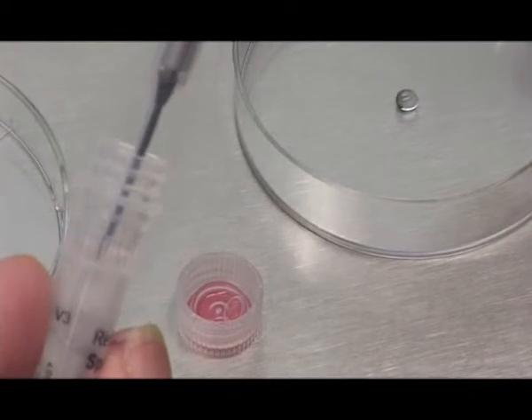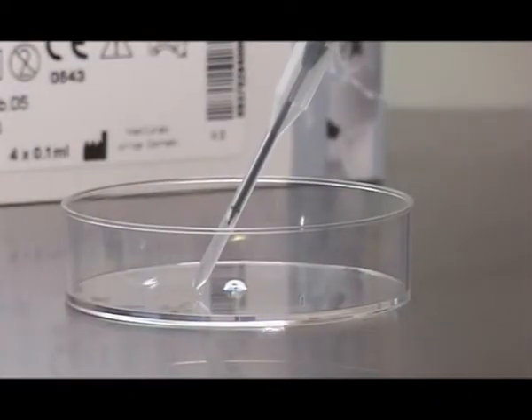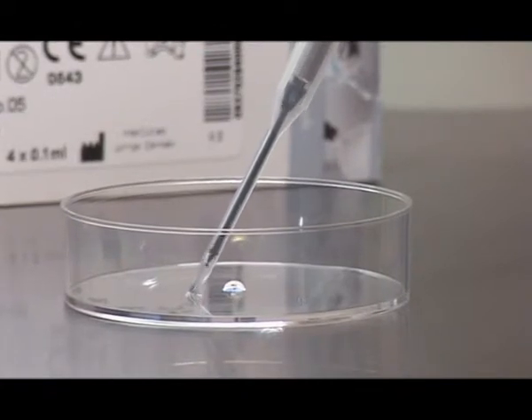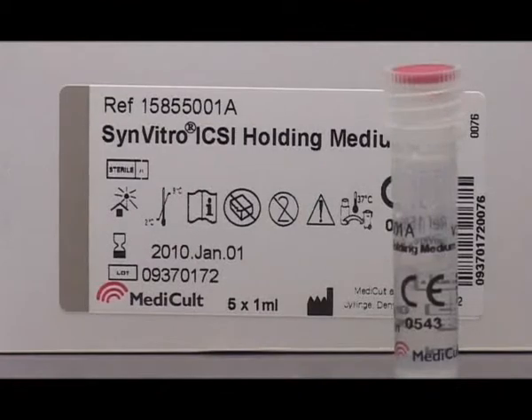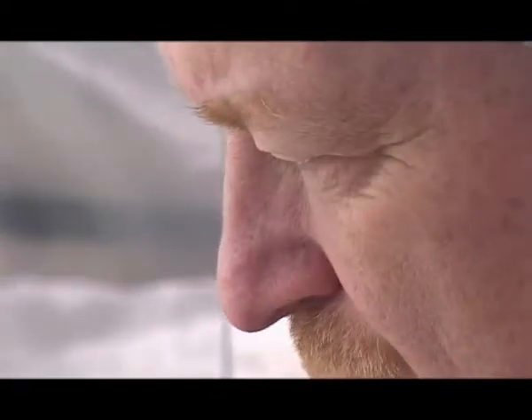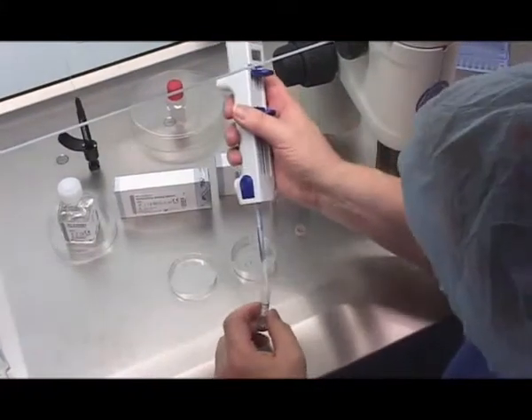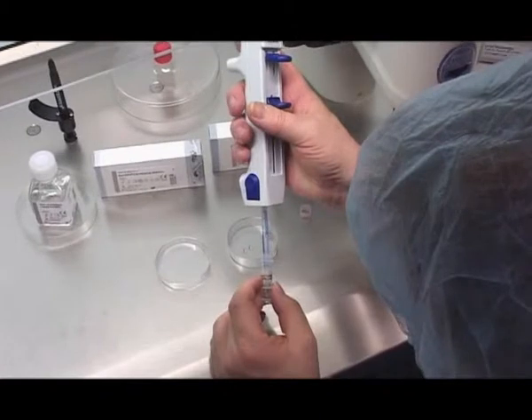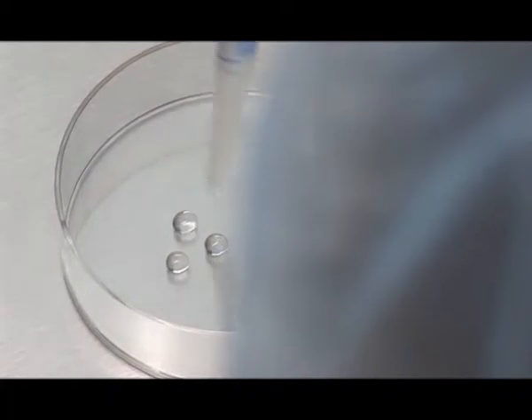One of the drops is used for pre-coating of the ICSI pipette. Depending on the number of oocytes to be injected during the ICSI procedure, pipette an equal number of 5 to 10 microlitre drops of holding medium onto the bottom of the dish.